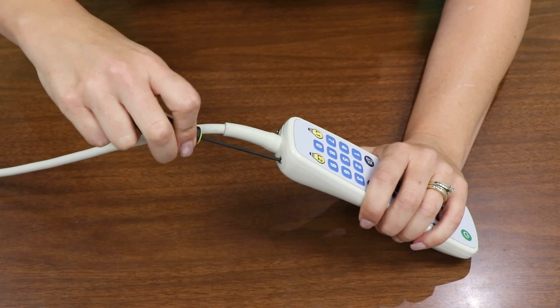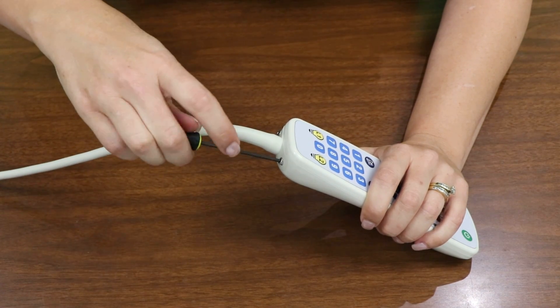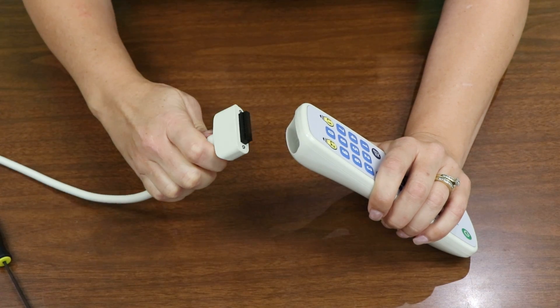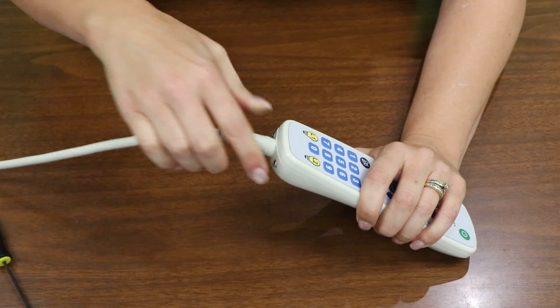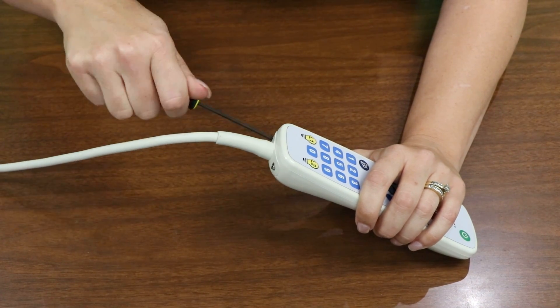Using a standard 3/32nd hex wrench, remove the two screws located on the bottom of the pillow speaker. Detach the cable from the pillow speaker, simply insert the replacement cable, and secure it into place. The unit is then ready to go back into service.